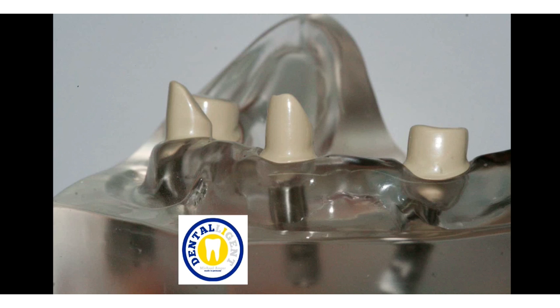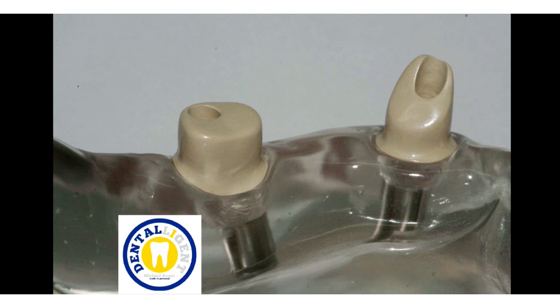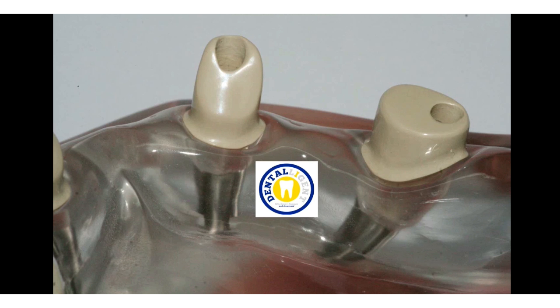What makes this material very interesting for telescopic constructions makes it particularly recommended for implants. In the next test series it is planned to establish a telescopic construction, and I am very excited about the friction behavior of PEEK on PEEK.